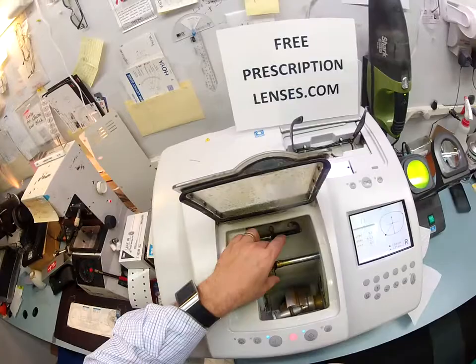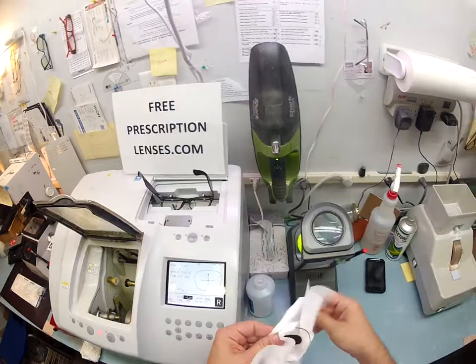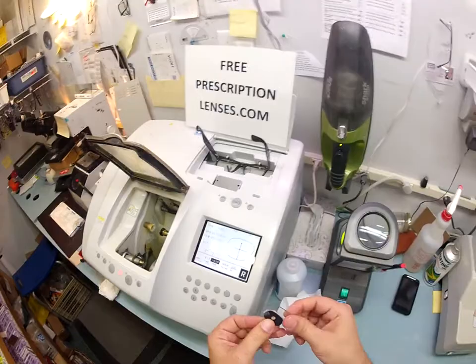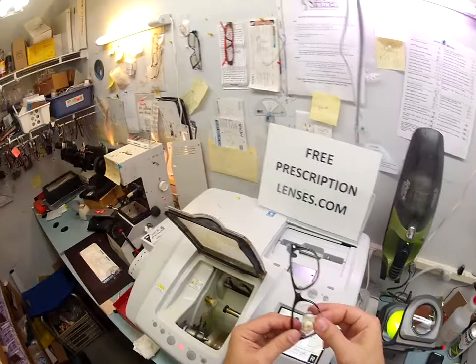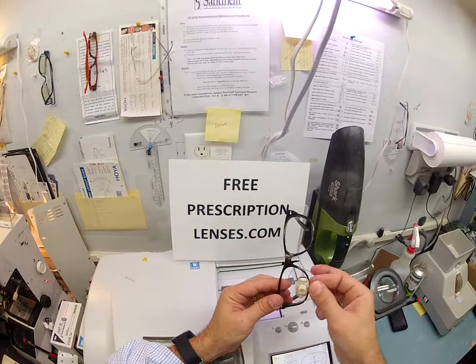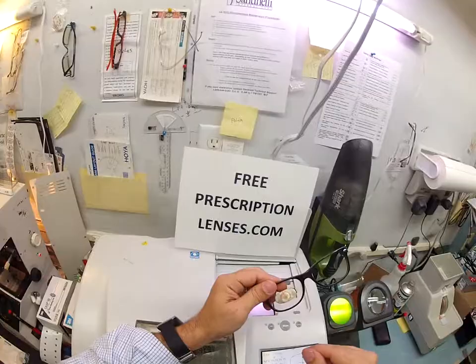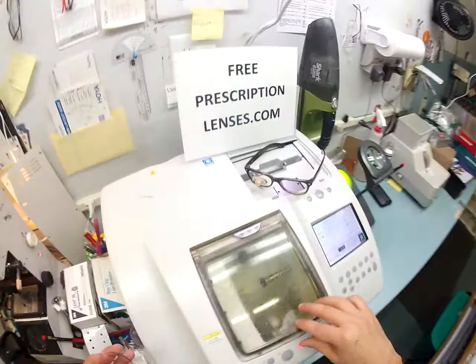Let me go ahead and get the paper towel ready. The first thing I'm going to do is dry everything off so your lens is not slippery. Now don't drop it on live TV. I'm going to go back to my hand stone, put a safety bevel on there — that's going to take away the rough edges. Now everything is nice and smooth and I'm going to see about getting this mounted. So the first thing I'm going to do is tuck this in. With the lenses I'm going to send you, this is what you do to put them in — you tuck them in at the outside corner. I hold the frame upright with the side I'm working on closest to me. I tuck this in, then I use my thumbs and I press down at the nose, and that snaps in perfect.